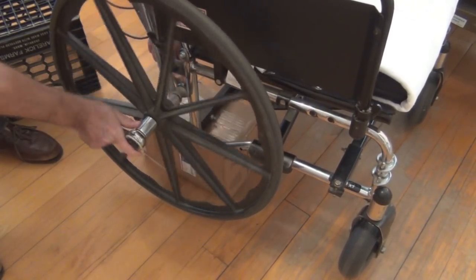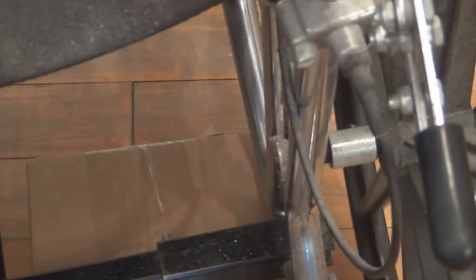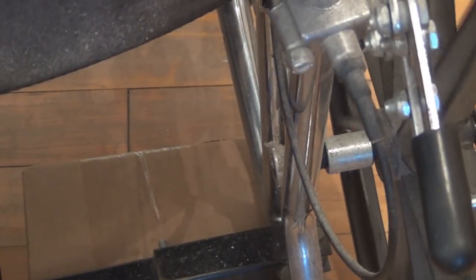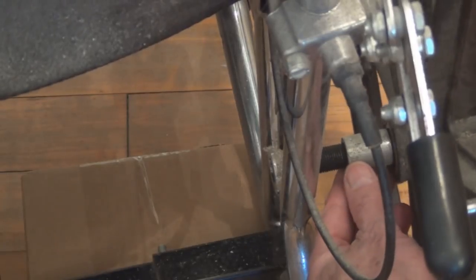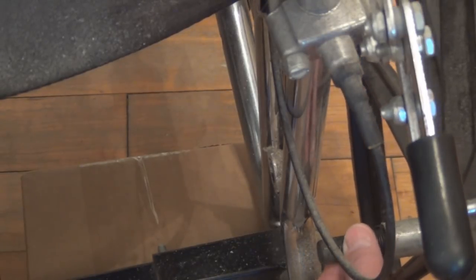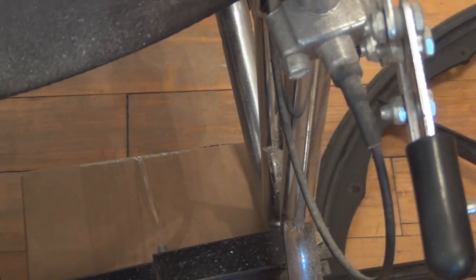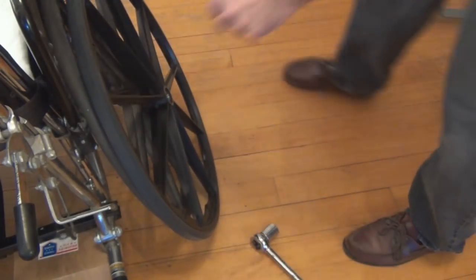There's the spacer, and I just took the nut off of this side. Take this off — there's a spacer — and the bolt just pushes out the other end. I don't want to lose any order here. Let me get a sponge real quick and clean that grime out of the nooks and crannies.